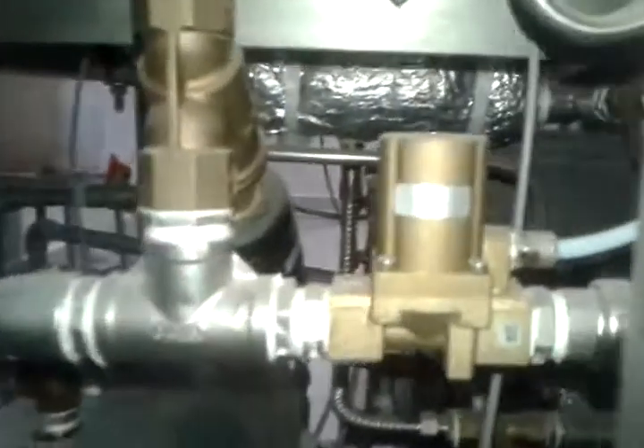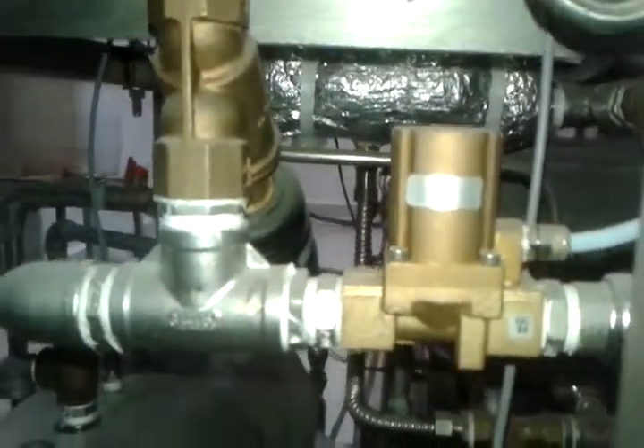We have another valve, V-10 — it's a pressure valve. When the door is closing and moving up, this valve is involved in the door pressurization mechanism.